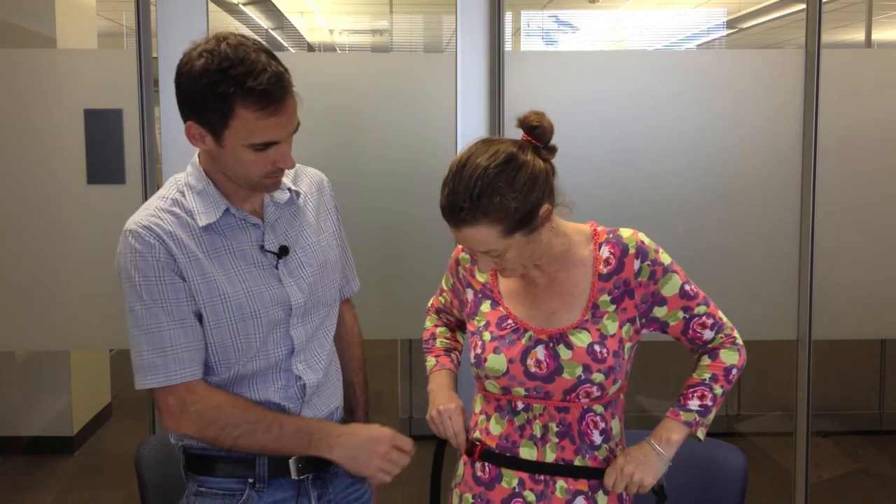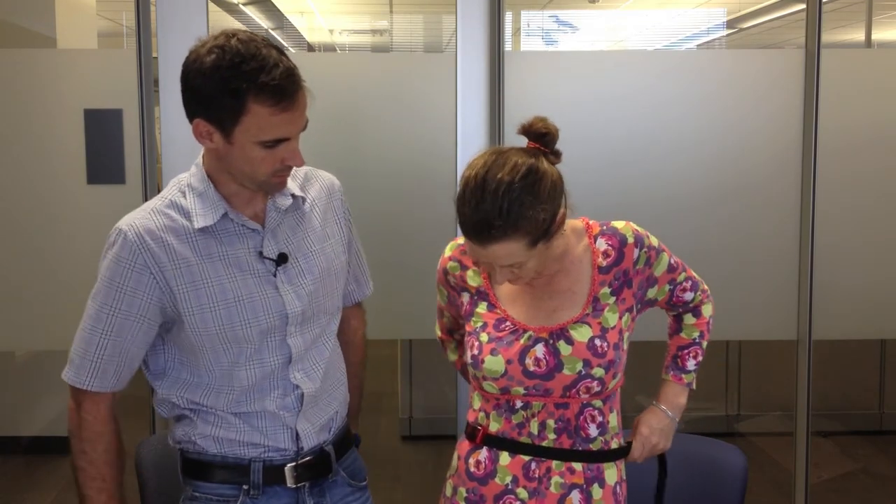So I'm going to put this bit sort of like right around there. A little bit above your hip — there you go. And then just click it in. Oh, that's really easy.